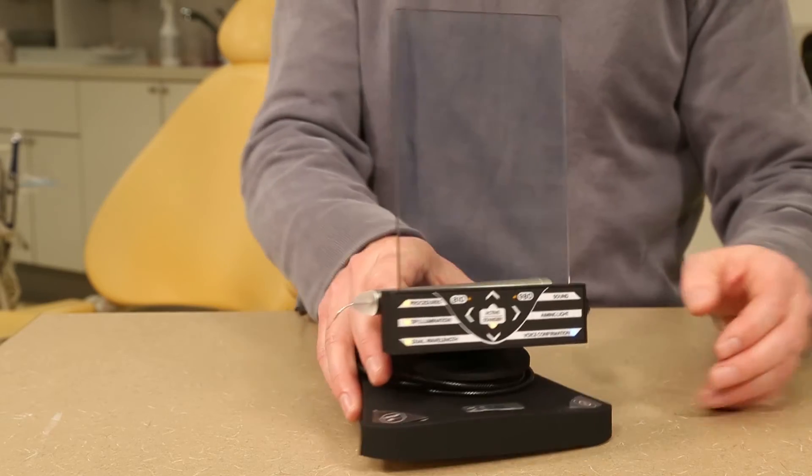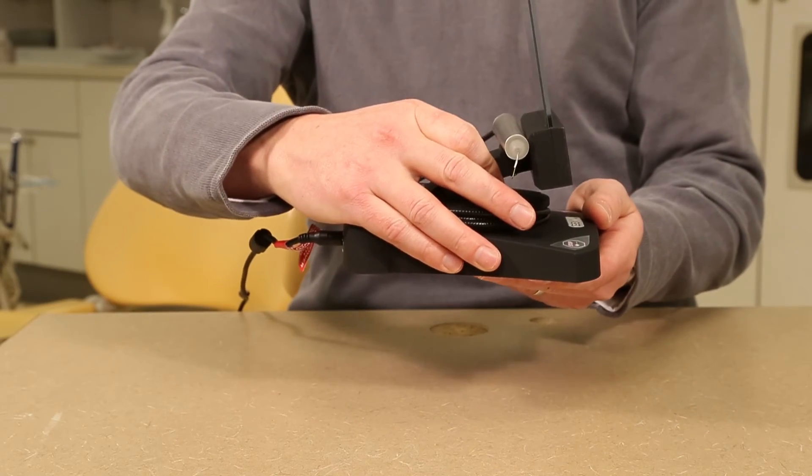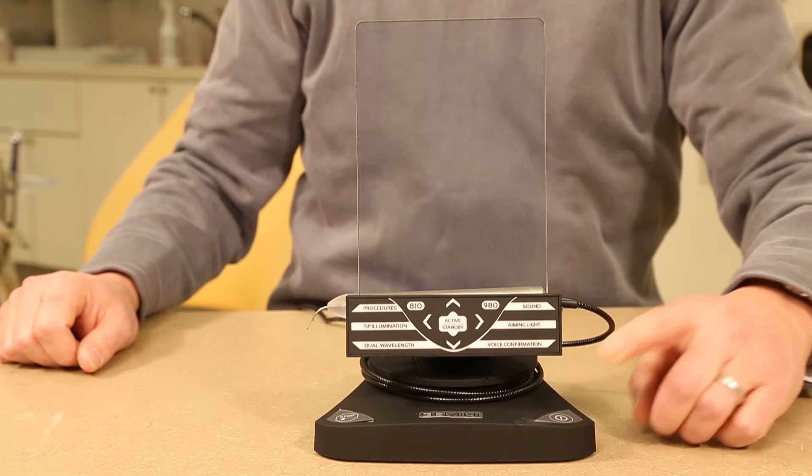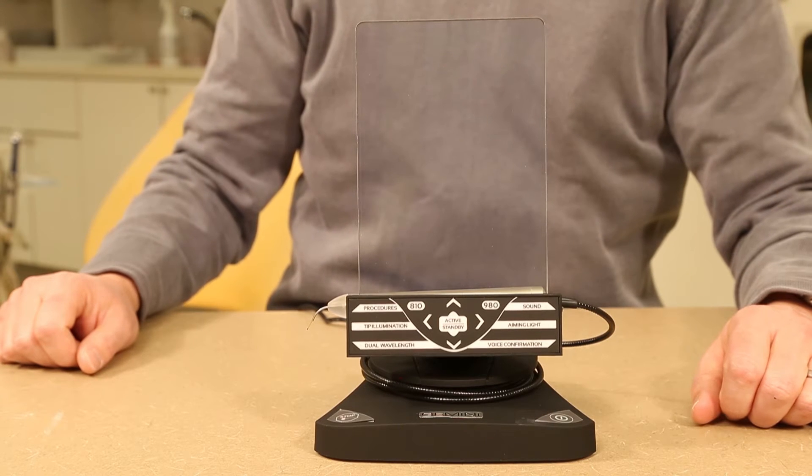Take care in handling the laser unit and only carry it by the base pedestal. Press the on off button in the front right hand corner to turn on the laser.